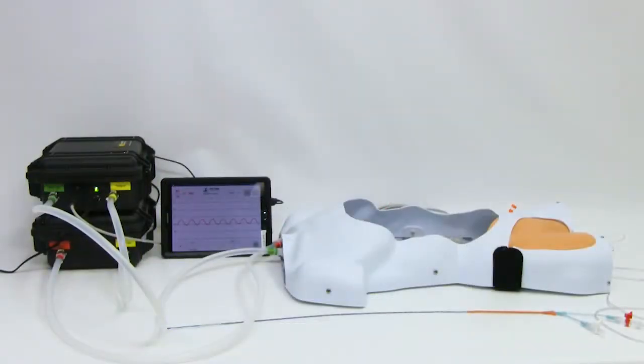With your pressures adjusted to your needs, the STAR is ready for REBOA training. If you'd like to prepare the STAR for arterial access training, perform the following in addition to setting up for REBOA training.